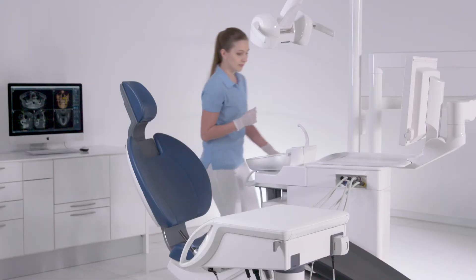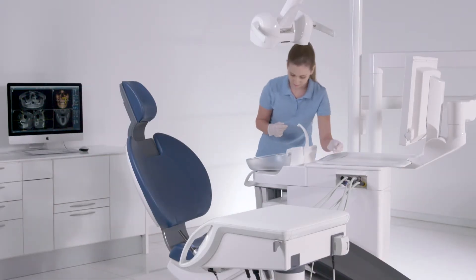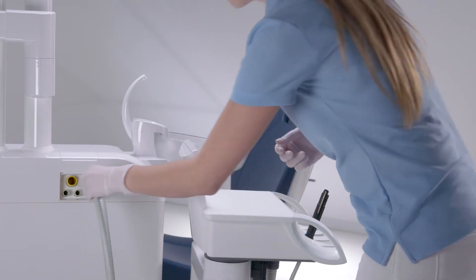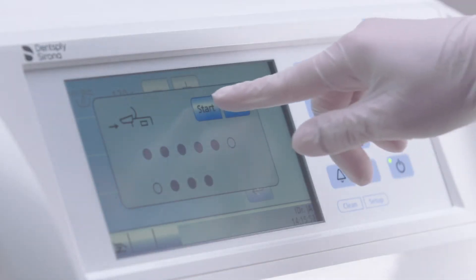Attach the instrument hoses of the dentist and assistant elements and the suction hoses to the designated adapters in the water unit, and then press start.